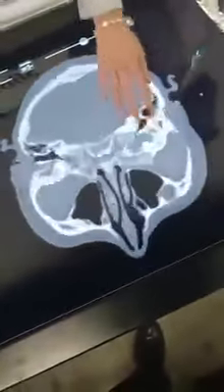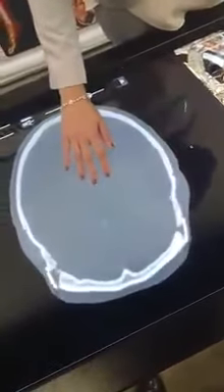What's most interesting is you can load in your own patient's MRI or CT scan, and from there you can get a 3D model of what you're seeing. Here we have a post-operative scan of a patient with a brain aneurysm, and this is the actual CT that was provided. You can go ahead and slide through the CT and see exactly where the clips were placed. You can also make a quick cut into the 3D model to see where the clips were placed — it's more intuitive when you see it in 3D rather than just focusing on the CT. You can also add in some vasculature if needed.